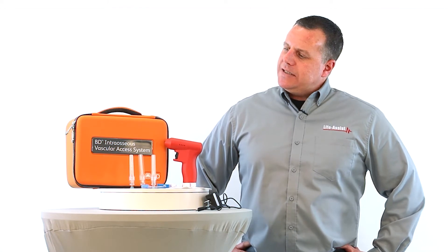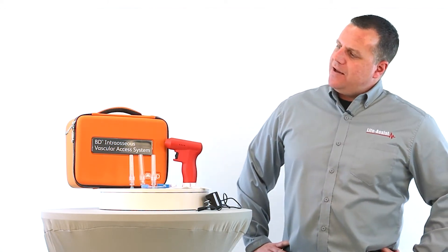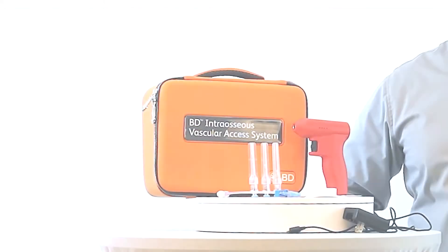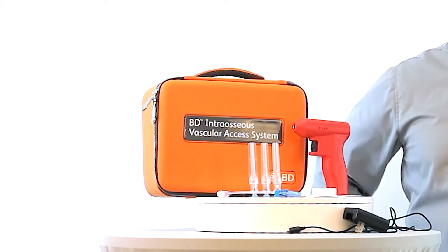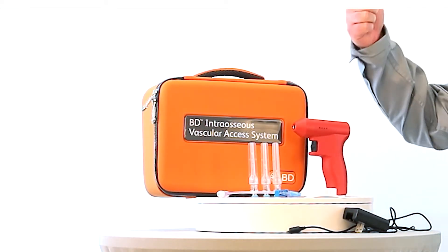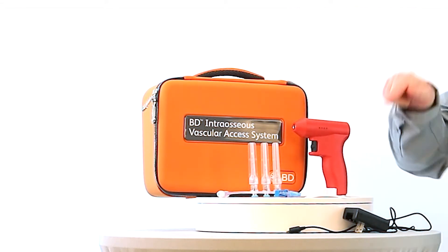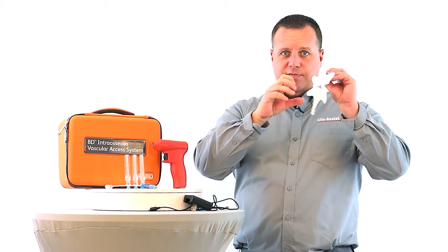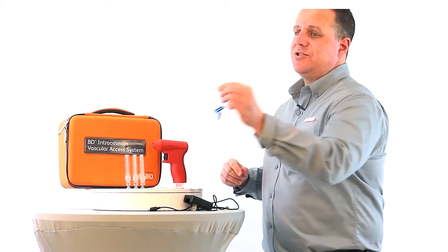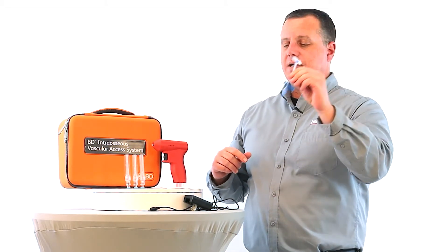I gotta tell you, this is the most innovative, safe, and user-friendly I.O. drill out on the market today. This system is the first of its kind to offer a lot of innovative features. It comes with a rechargeable power driver, a needle safety device system, an open clasp securement device, and an extension set with not only one but two access ports.